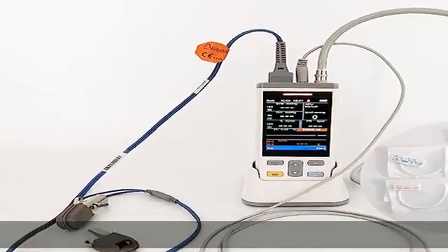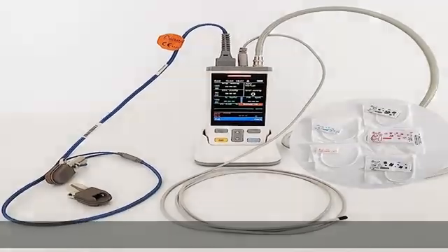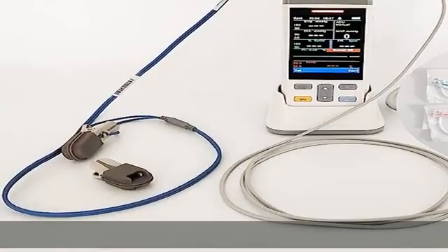Accurate measurement in 0.05% low perfusion index, the world leading product in the movement environment.